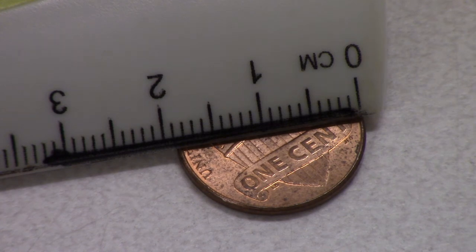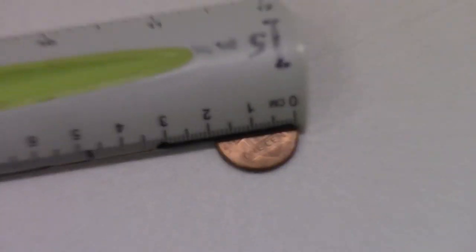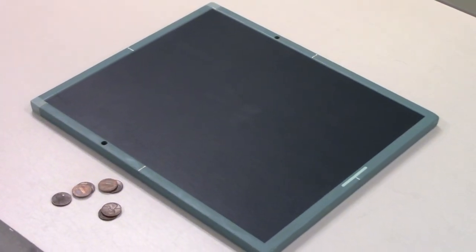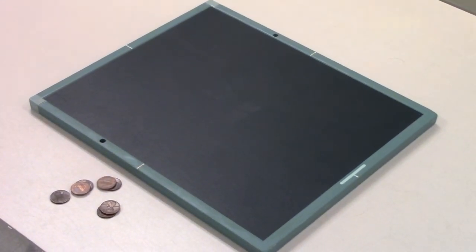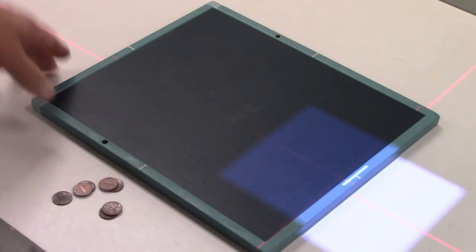Here's what we're going to do. I've got a CR cassette right here. This happens to be a Fuji CR cassette, but you could use any one. I don't recommend doing this experiment with DR systems because DR systems do not allow you to do something called a double exposure. The double exposure for this experiment works really nice.